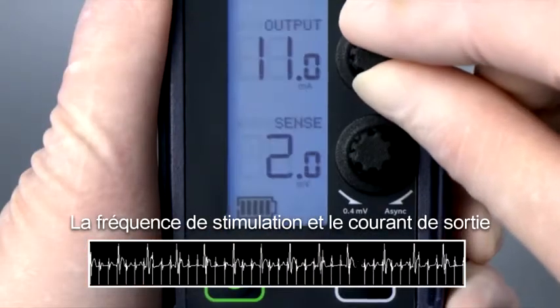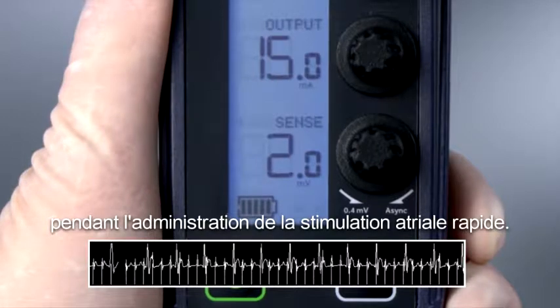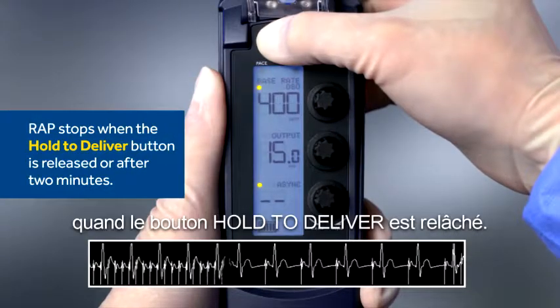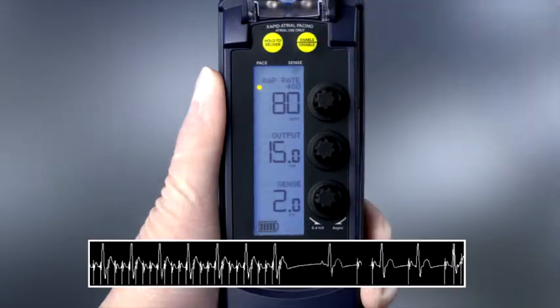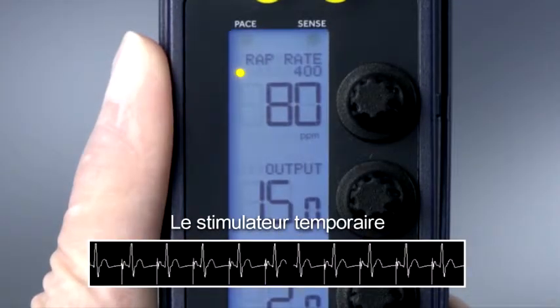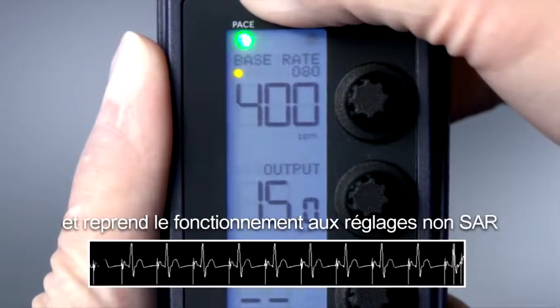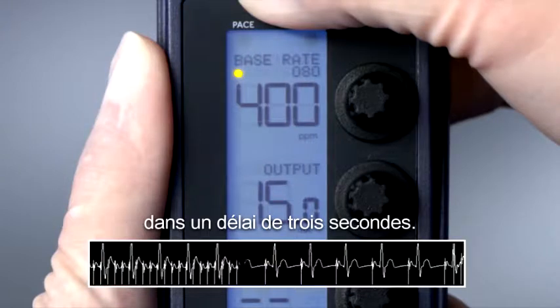The pacing rate and output can be adjusted while delivering rapid atrial pacing. RAP delivery stops when the HOLD to DELIVER button is released. The temporary pacemaker stops delivering rapid atrial pacing and resumes operation at the non-RAP settings within 3 seconds.